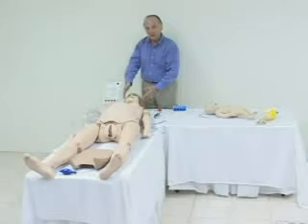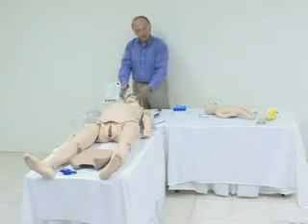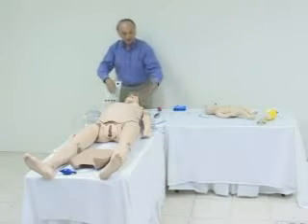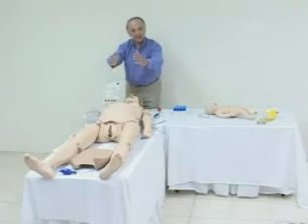Noelle, in either the 550 or 551, can be intubated orally or nasally, BVM, and it gets a real nice chest rise. And you can do IM, IV, and of course, deliver the child.